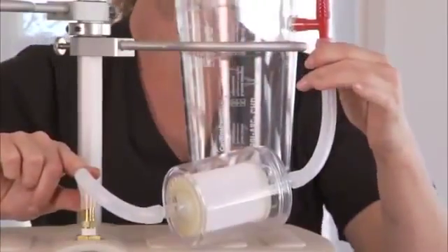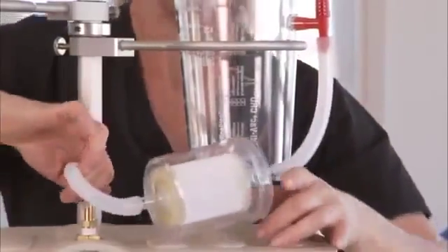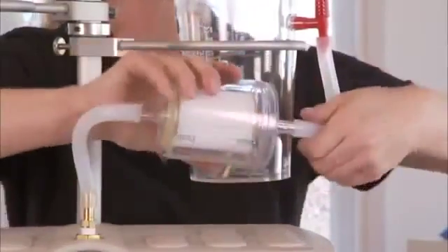Verify that the filter has been installed correctly. Make sure all tubing and disposables are correctly connected. Check to see if something is blocking or if something is plugged inside the suction instrument.